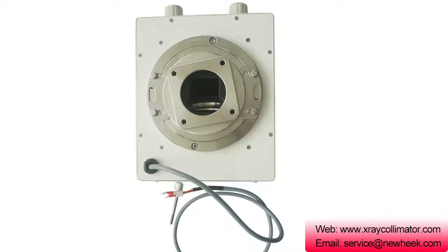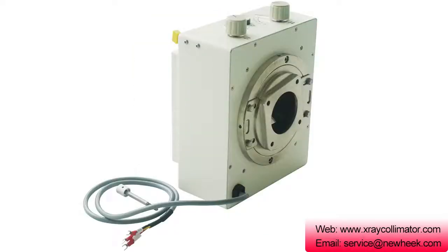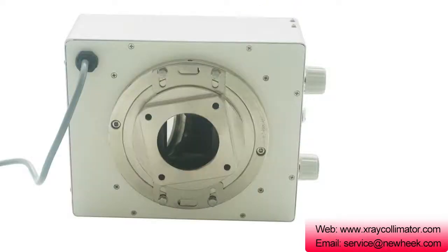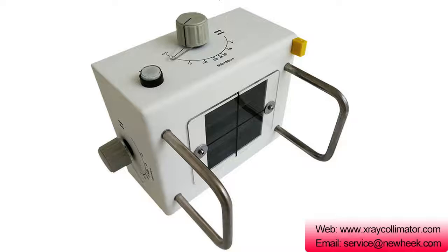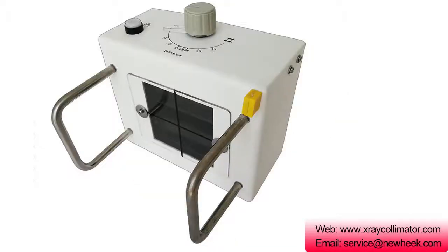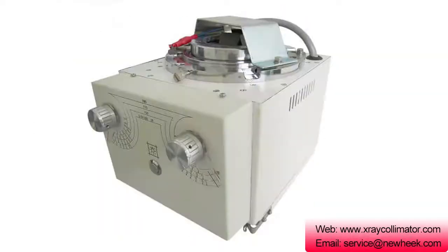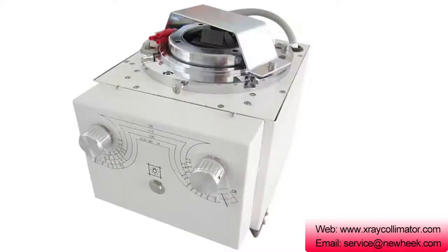In the positioning of the sleeve, the X-ray Collimator is equipped with a special connecting piece and a flange for fixing and fitting the sleeve window, and can be rotated within a certain range. During installation, the focus position of the X-ray Collimator must coincide with the focus position of the actual X-ray tube assembly.